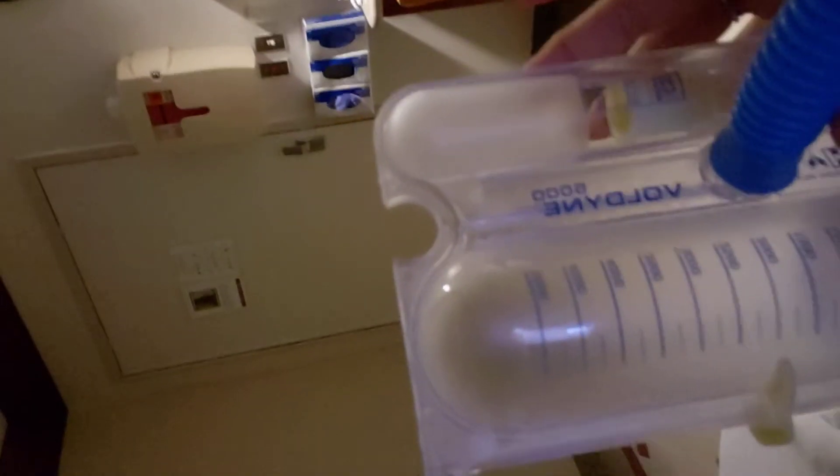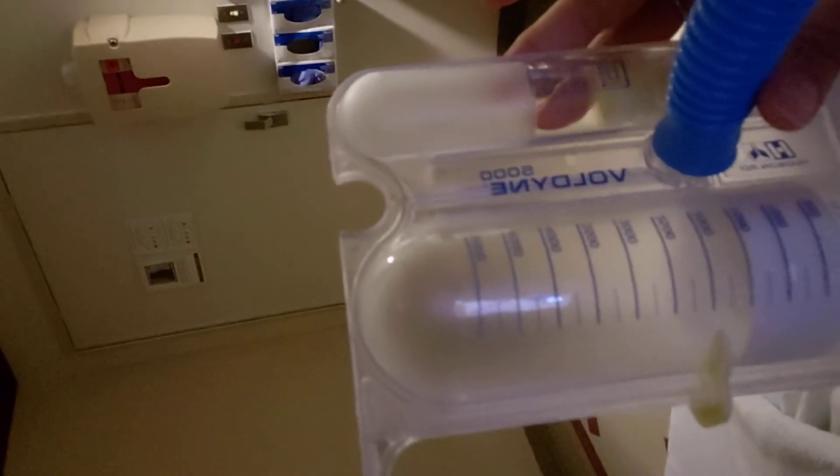The goal is that you set this — I'm not quite hitting a thousand so that's where I set mine — but you can adjust this to help yourself see how you're progressing. And then there's this mouthpiece over here. You're going to put this in your mouth and inhale.